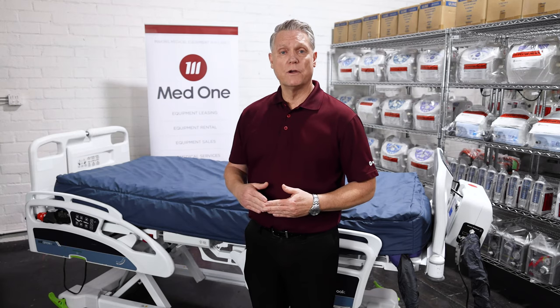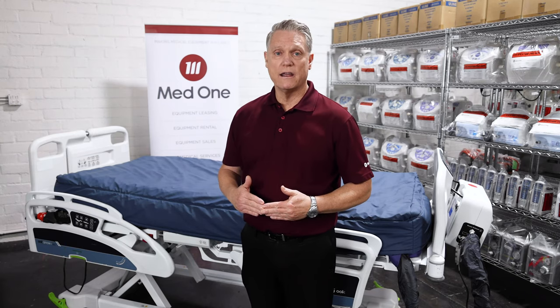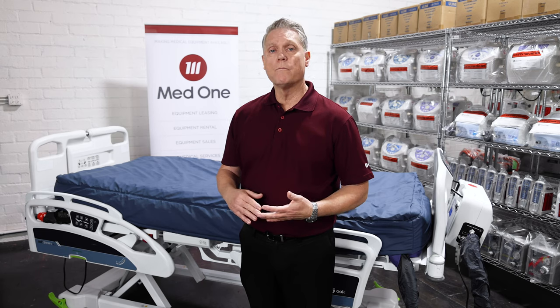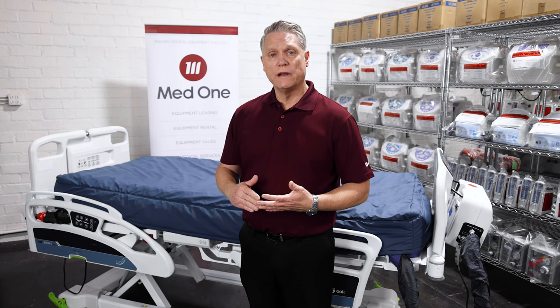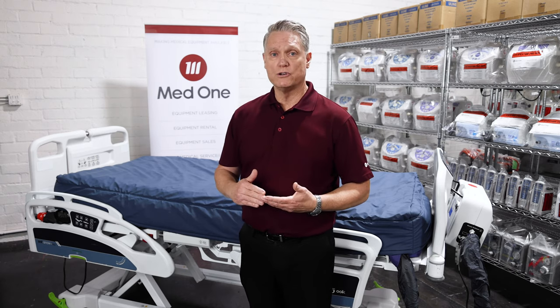This is a very versatile mattress for your patients. It has a 1,000 pound weight capacity and it comes in a variety of widths from 36 inch to 42 inch to 48 inch sizes. The mattress has superior pressure redistribution through immersion and envelopment. The mattress also provides alternating pressure therapy which will be good for your patient to be able to offload that pressure and promote healing.